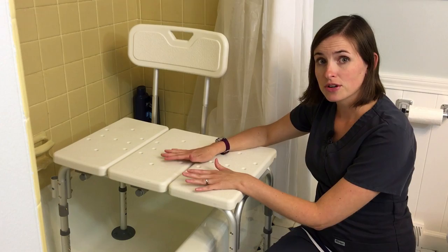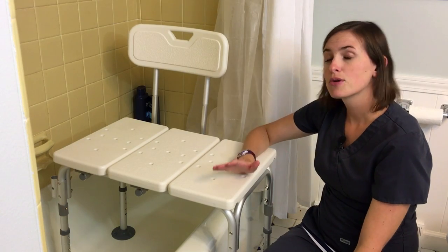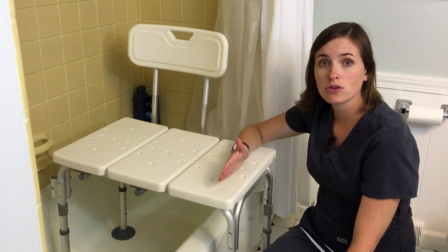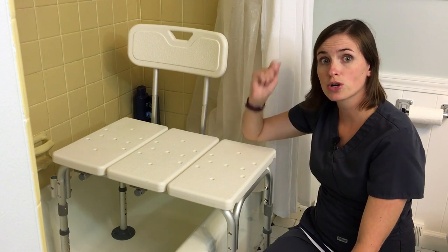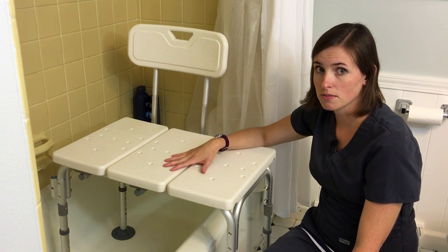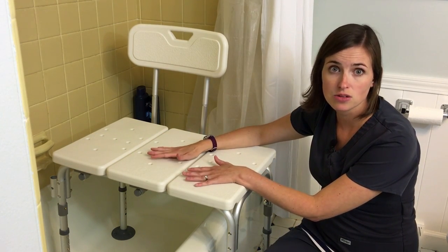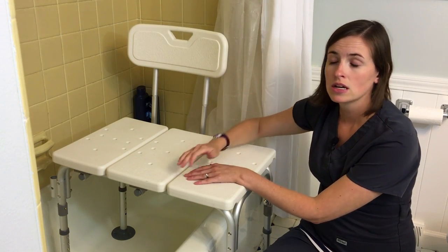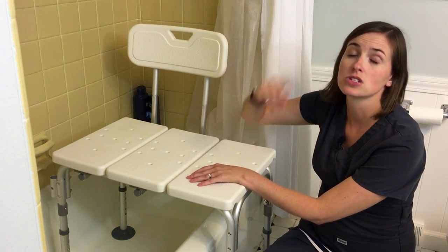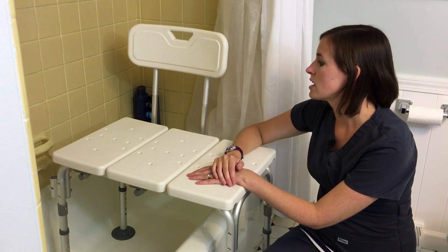Once these are in place, an important consideration is how to keep the water from spraying out of the shower. That's a pretty easy solution if you already have a shower curtain in place. If you have a metal and glass surround for your shower with glass doors, you're going to need to remove those glass doors first before even installing the tub bench. If this is a temporary solution and you'd like to keep the glass surround, feel free to leave the metal frame around it. If it's a more permanent solution, I would consider removing the metal surround and just installing a standard shower curtain rod — it's just easier and works a lot better with this type of equipment.